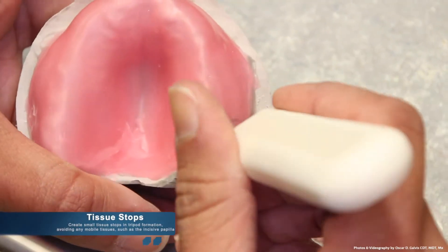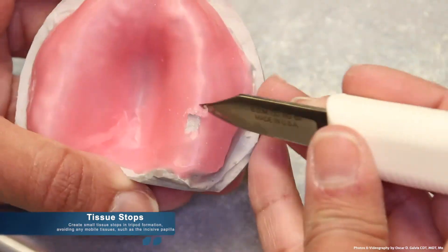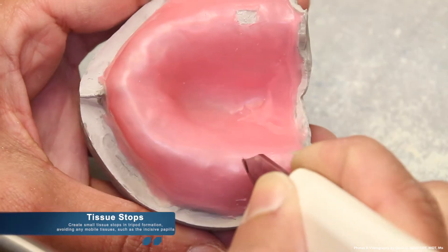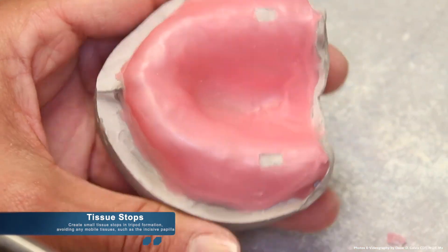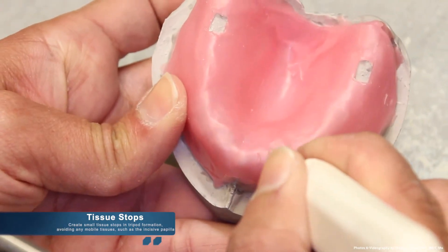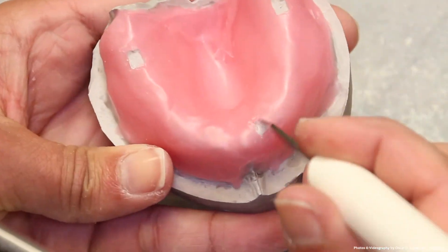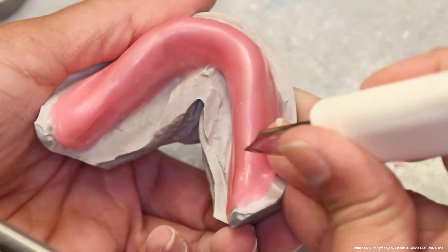The next step is creating tissue stops. In order to create tissue stops, you have to make small tripod formation holes in the wax avoiding any mobile tissue, such as the incisive papilla. The reason we avoid this tissue is because we do not want to displace it during the impression taking process.